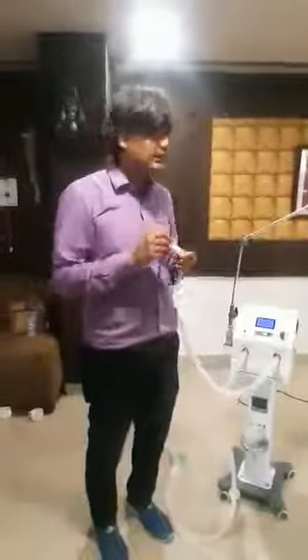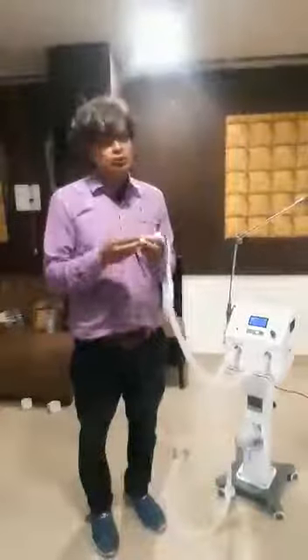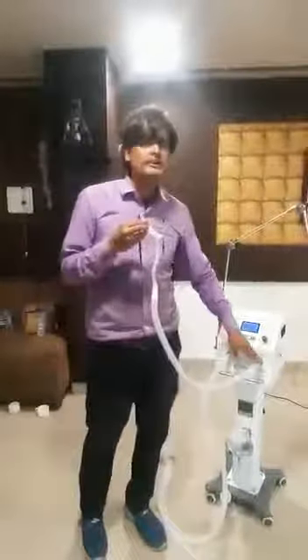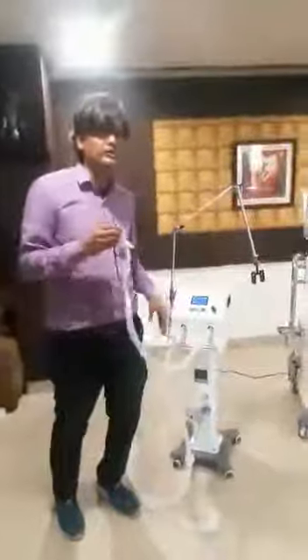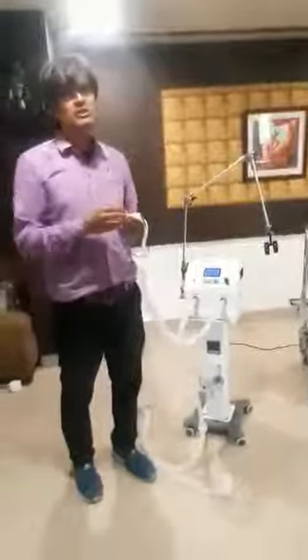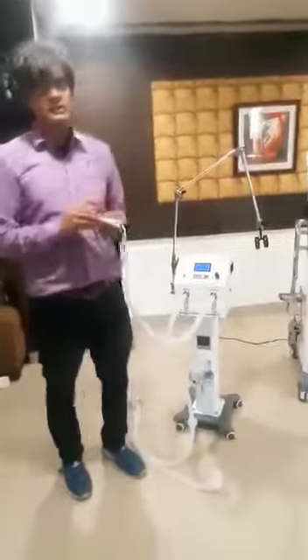The benefit is that the patient will not feel discomfort because of the chilling effect. There will be very low oxygen support, and it will not unnecessarily waste oxygen during expiration. Also, I don't need to make a complicated system of temperature or humidifier. Although we have a humidifier and temperature controller, for most patients, because of the intermittent flow of oxygen, expiration it goes off, inspiration it goes on. So that gives the highest level of patient comfort.